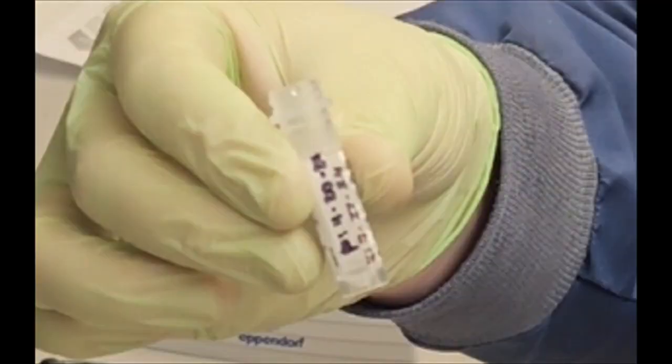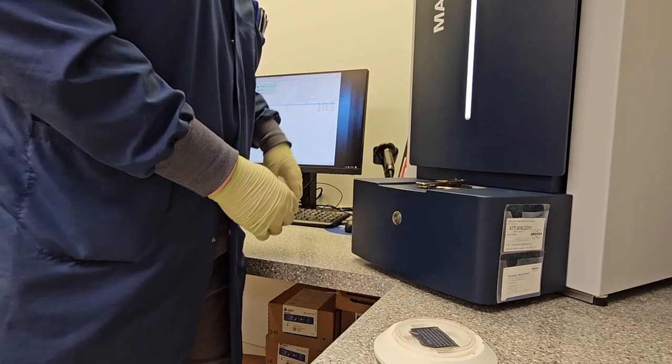Related to the target is the matrix used with it. Once a colony is placed onto the target, you have a short time, about 20 minutes, to apply the matrix to the target before the organism dries out. The matrix is important for a sort of complicated reason, so let's talk about how the analyzer measures and collects data.